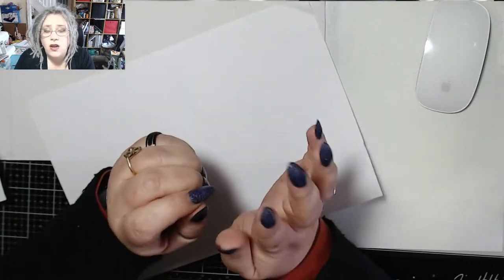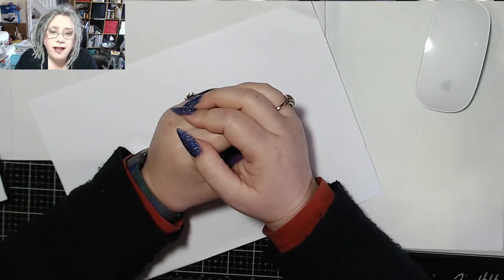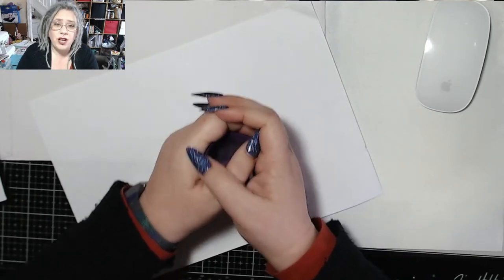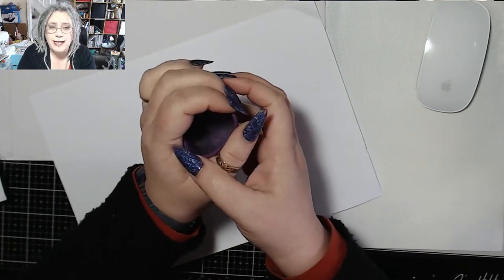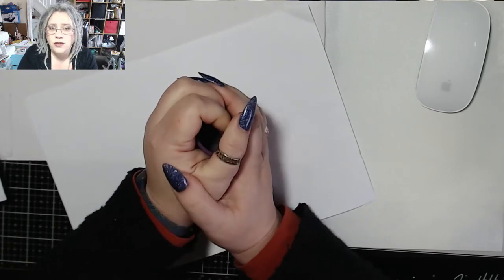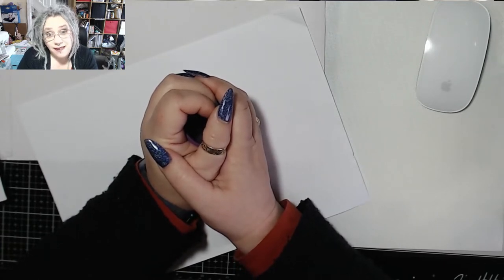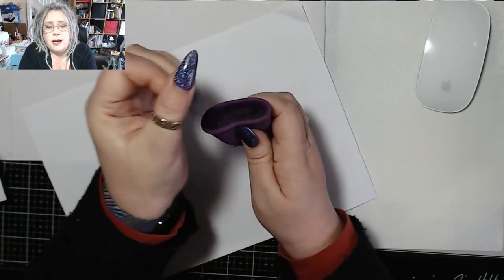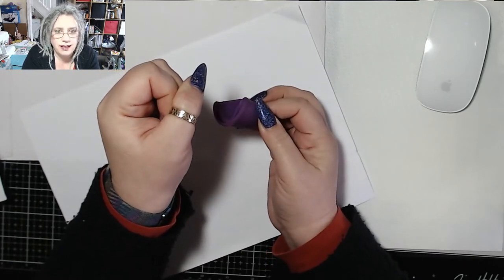It is really, really that simple. The biggest thing that is going to stop you having a successful cup insertion is you. Your own nerves make you tense, which then makes all of your insides clench. One of the first things that happens when somebody is tense is that they get constipated — because your muscles all close up. Try inserting a cup into something that's rigid and closed up like that — it doesn't matter how small you make that cup, it is not going to happen.